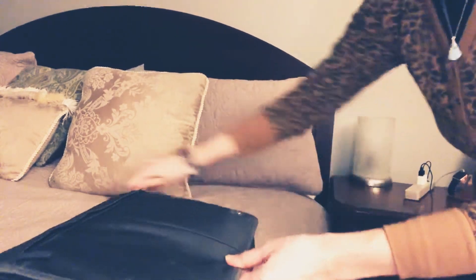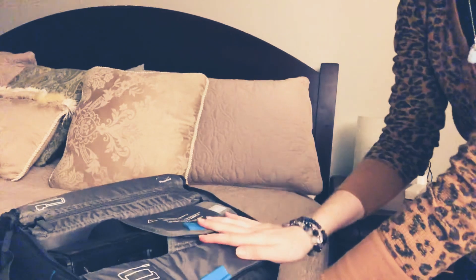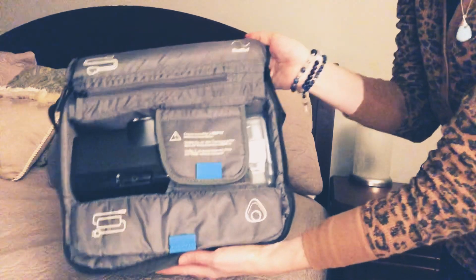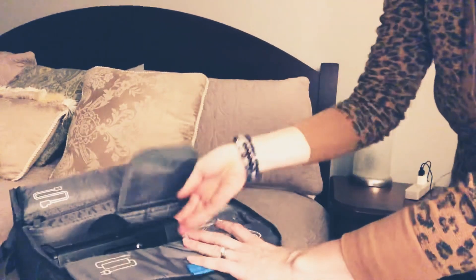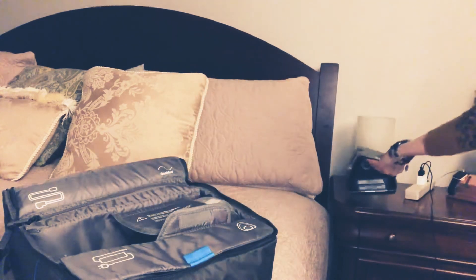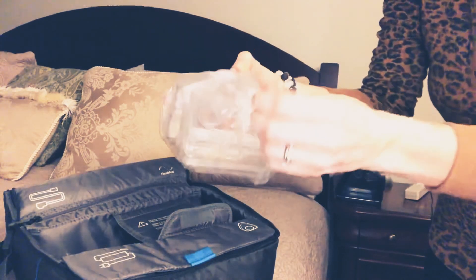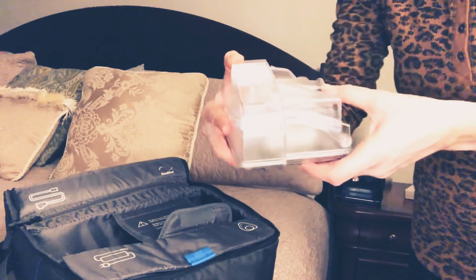Let's unpack the bag. For my example here, I use the ResMed AirSense 10. When you open it up, each part of the machine has a compartment. We're gonna open this part up and take the motor portion of the CPAP out. I'm gonna set that right on my nightstand, and then you have your humidifier chamber which will still be in the packaging, so we're gonna take that out.